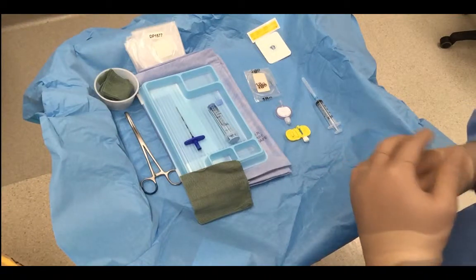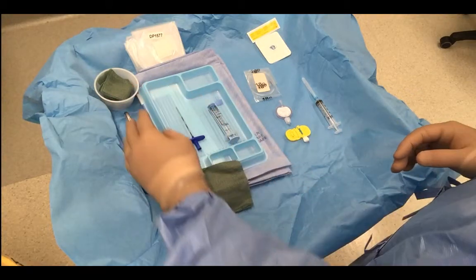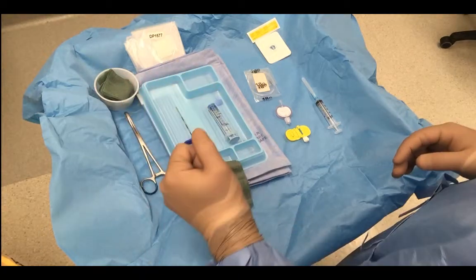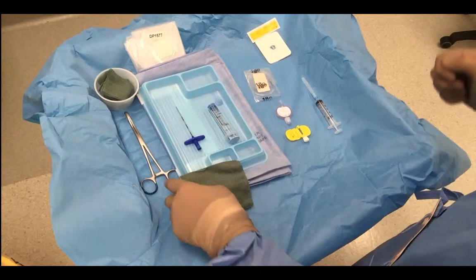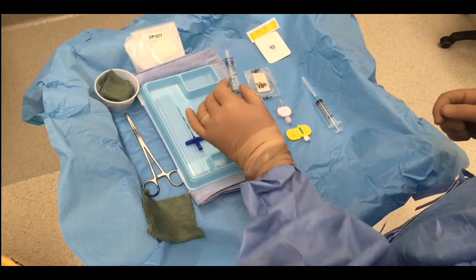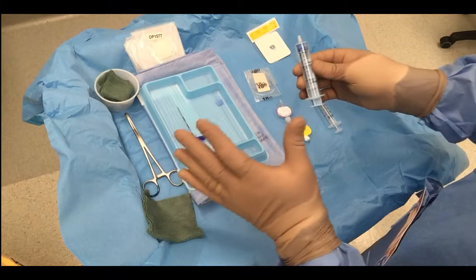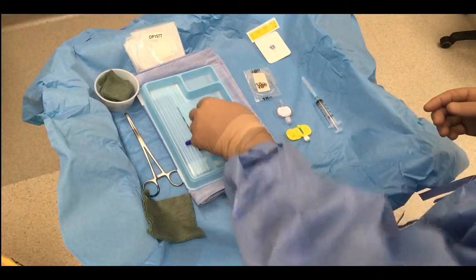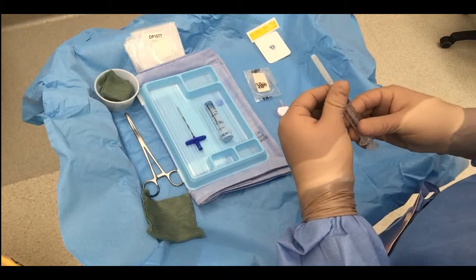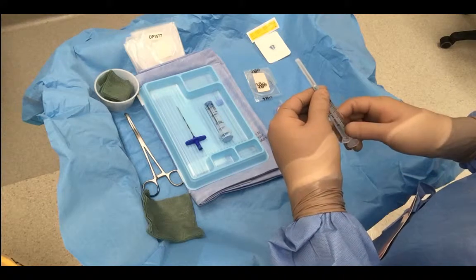So, here we have our epidural tray, and we're going to go through the items that are required on this tray. We've got our receptacle for prep. This is of course not going to be poured onto the tray, and we're going to receive some prep in this bowl off the tray when we're ready to prep the patient's back. We've got spare gauze, we've got our Tuohy insertion kit and our modified loss of resistance syringe, which is a low resistance but not friction free syringe, unfortunately. We've got a syringe and a sharp 23 gauge Quincke needle for local anaesthetic administration to the skin.